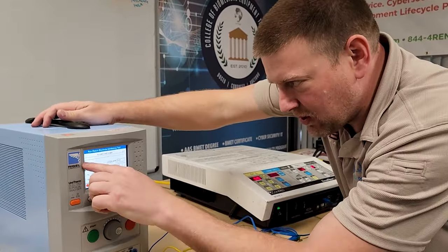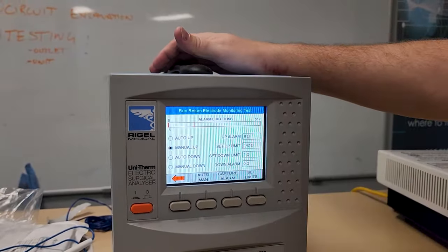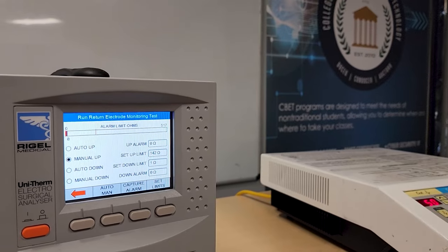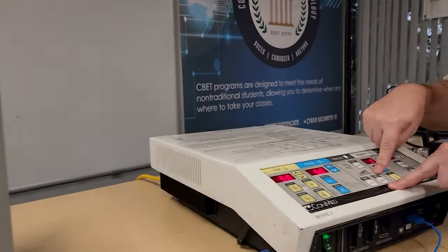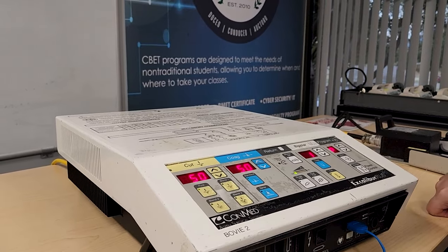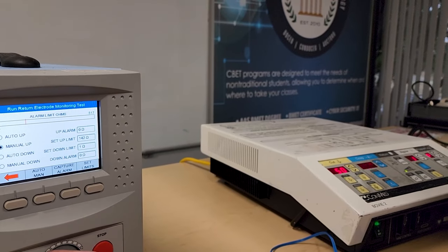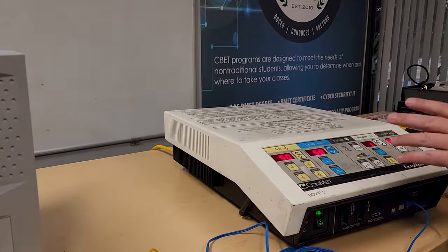The Rigel display numerics are a bit small — it's currently reading about 5 ohms, and the cap appears to be 517 ohms. I'm showing good at the low end. Setting it to dual pad and clicking Monitor Set, it accepts the value. As I increase the dial — 10, 11, 12 — there it is. Increasing just three to four ohms throws the error again. So it knows what it's doing and has accurate measurements.